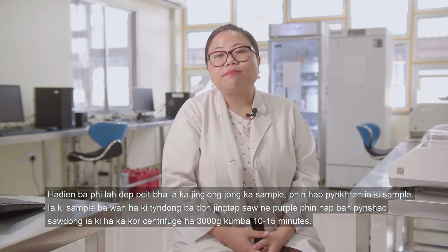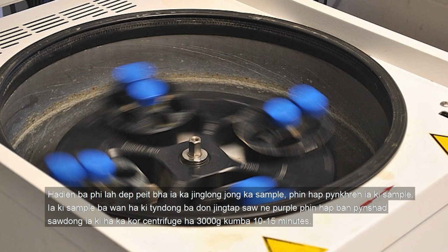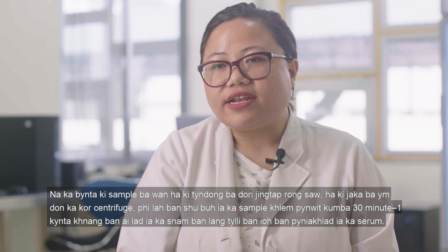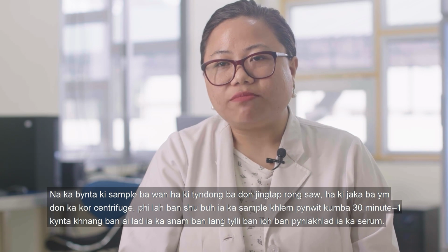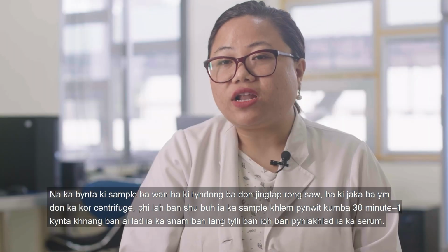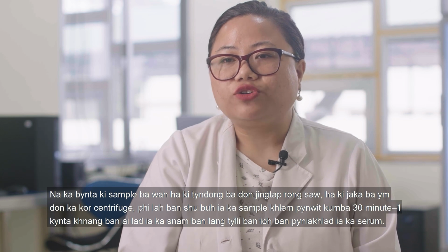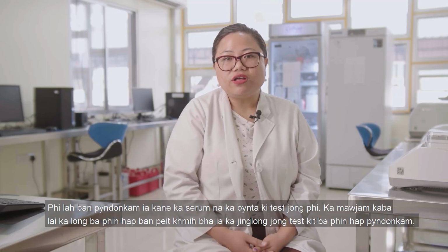After you have checked the integrity of the sample, you're going to prepare the sample next. For blood samples that are collected in red capped or purple capped vials, you're going to centrifuge the samples at 3000 G for 10 to 15 minutes. To be noted that for red capped vials, in facilities that do not have centrifuge equipment, you can allow the sample to stand for 30 minutes to 1 hour in order to allow the blood to clot and the serum to separate. You can use this serum for your test.